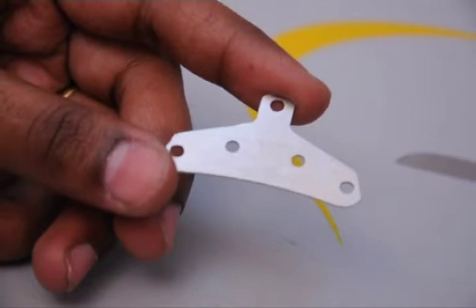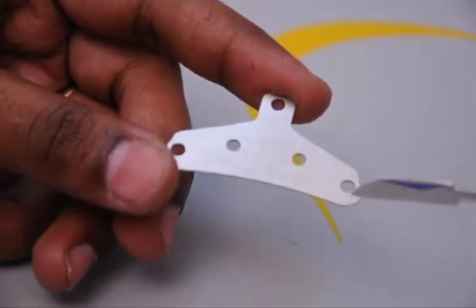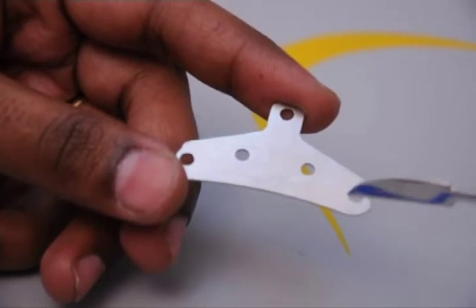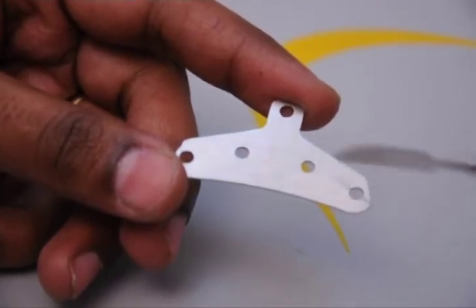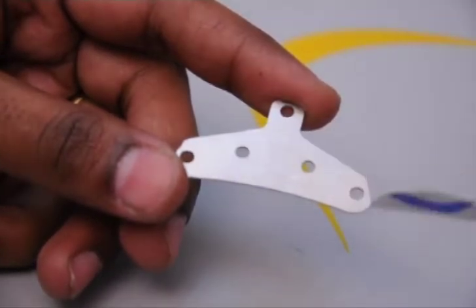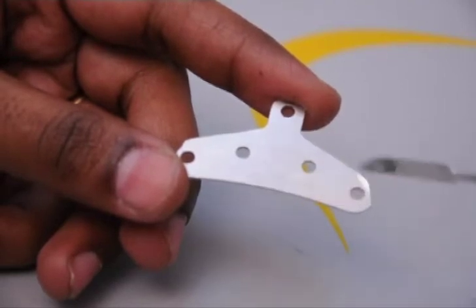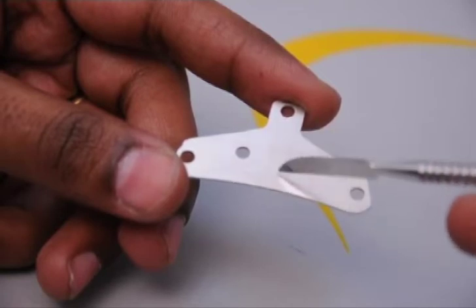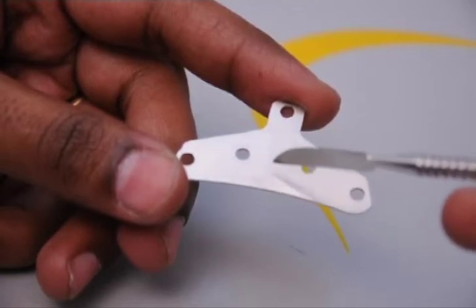These are the upper tracing plates. This upper tracing plate will be retained onto the upper denture base with the help of retentive slots. It is on this upper tracing plate that the patient will be giving the arrow mark tracing, which can be recorded by the dentist.